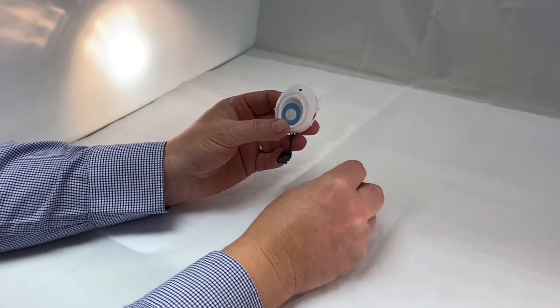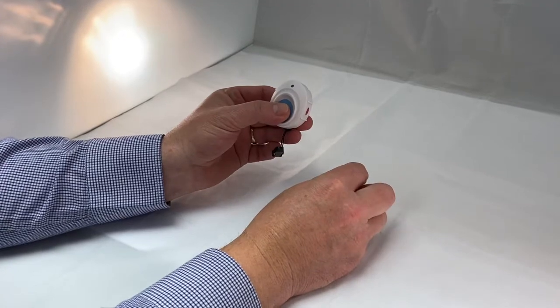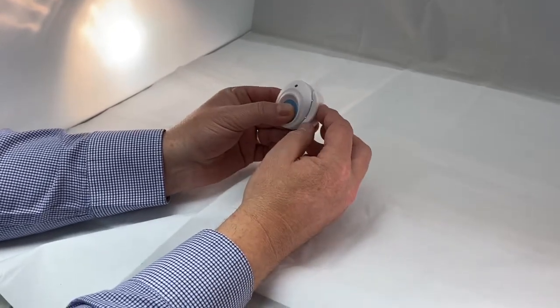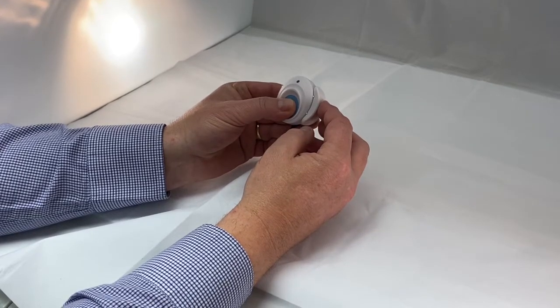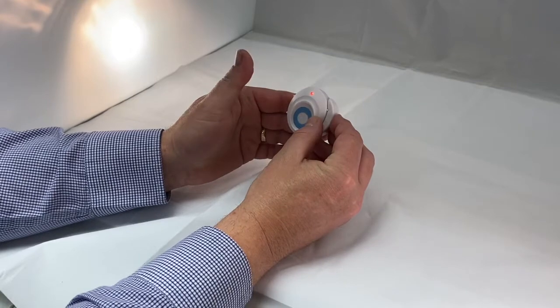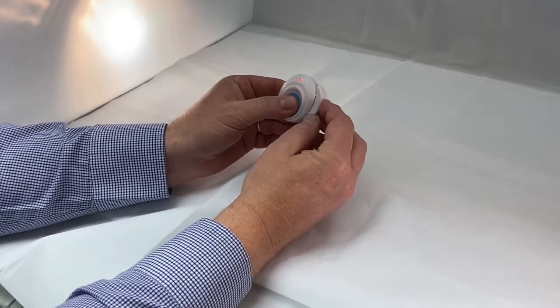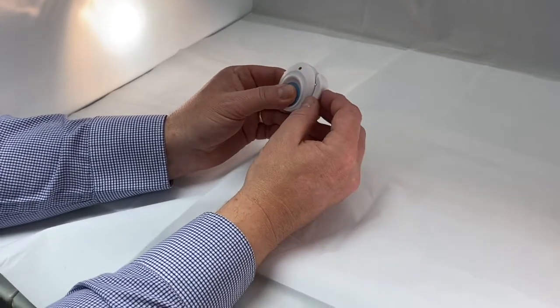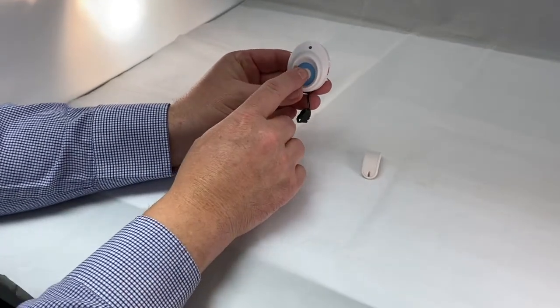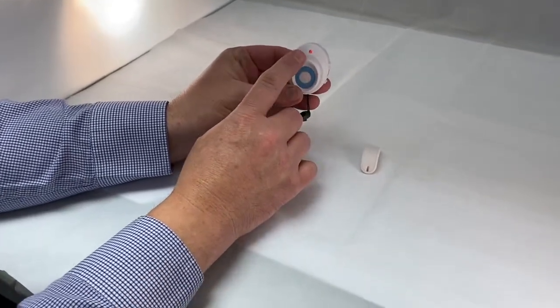To switch the device on, press the center button, place the magnet to the red dock, and hold for four seconds. Red LED should come on solid. Remove finger, replace finger, remove magnet, replace magnet, now remove both to test. The device is on. Press the center button and the LED will light.